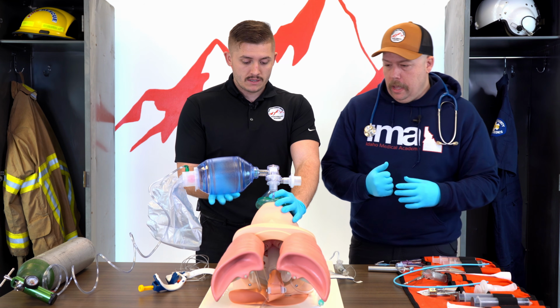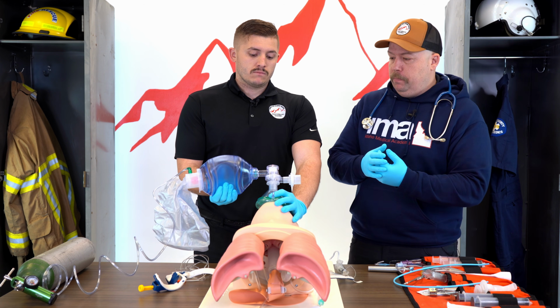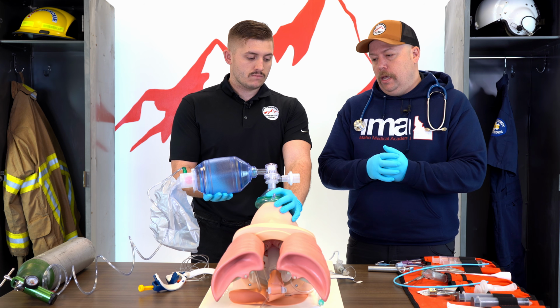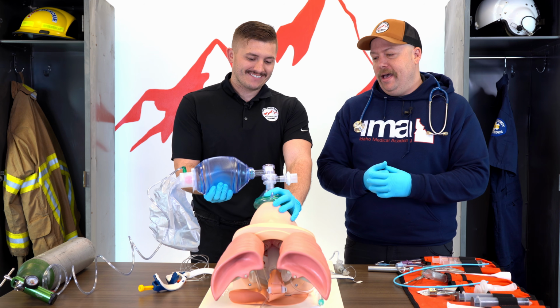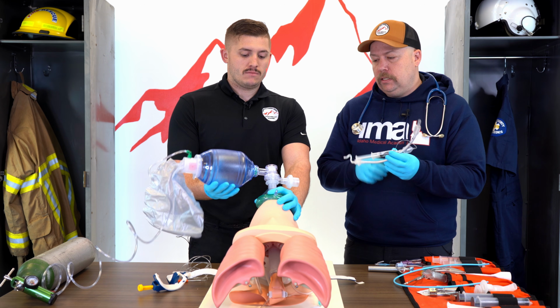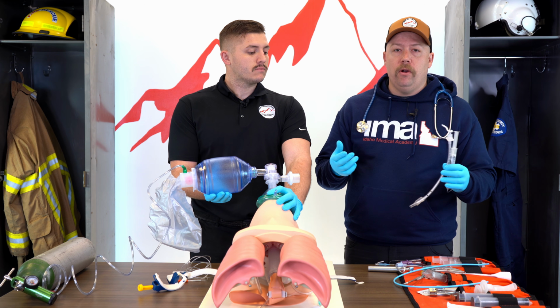Cool. So for this to be successful, one of the things that we want to do is make sure we have all our equipment set up, like Cody said. If your partner asks you to do that, if it's a partner you've worked with before, you might know how they like things, because we can be prima donnas a little bit sometimes as paramedics about how we like our things set up. But if not, the general stuff you're going to want to do, like Cody said, make sure you have an ET tube set up. There are different sizes of ET tubes. So it's not a bad idea to ask your partner what size.